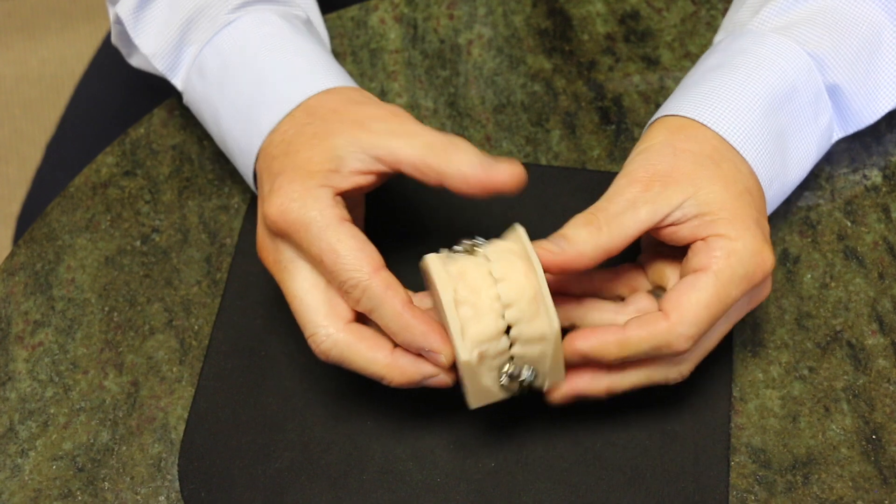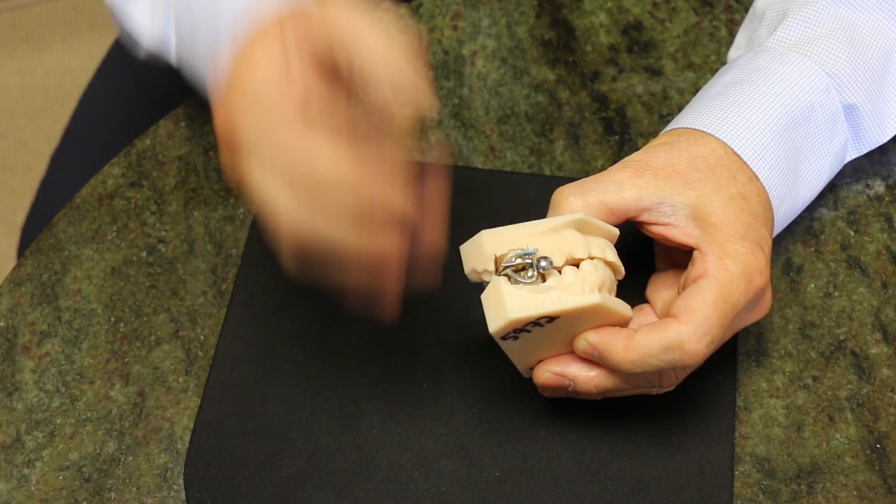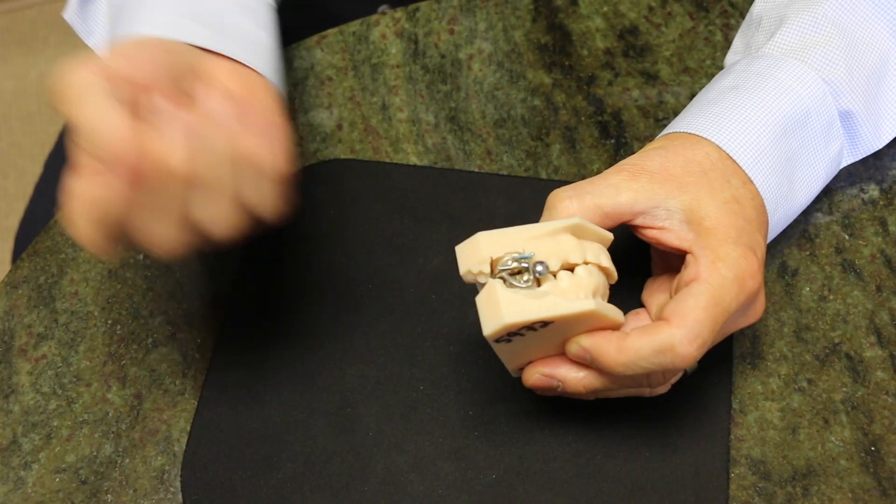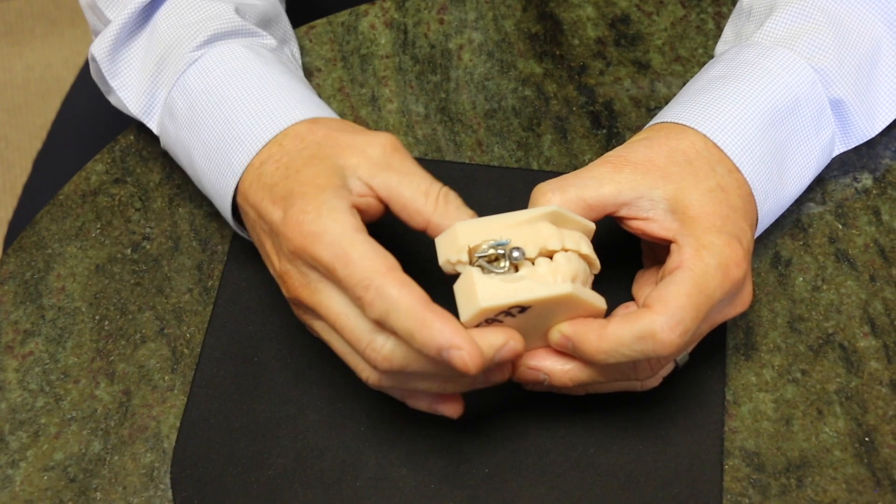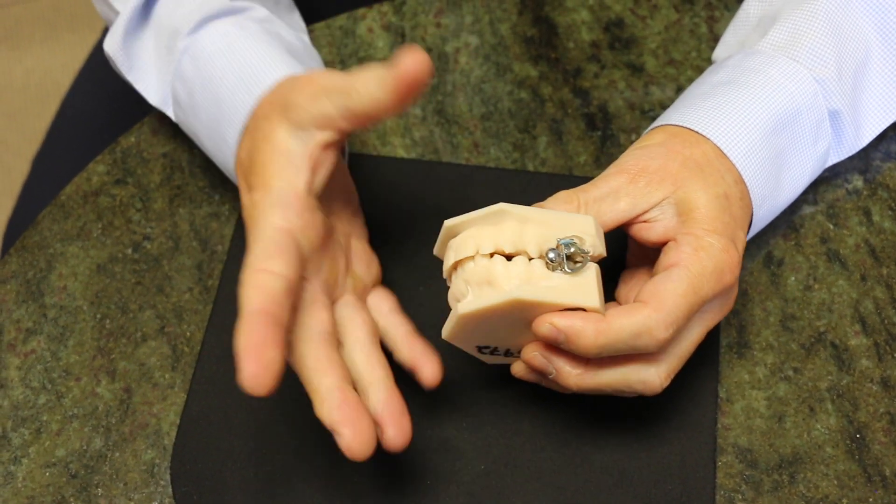While that's in place the lower jaw is then growing back into position in the socket, or at least the part of the jaw that attaches to the head is growing back into the socket, making this new bite permanent.